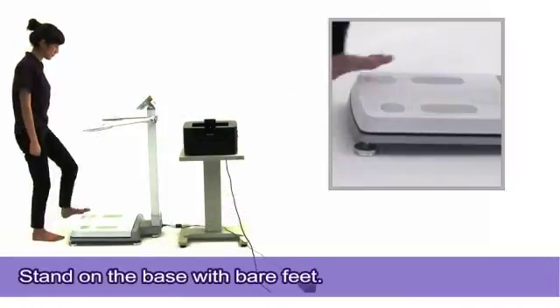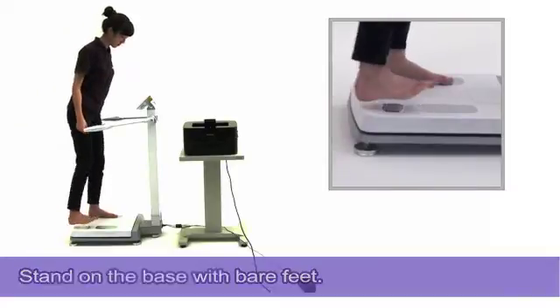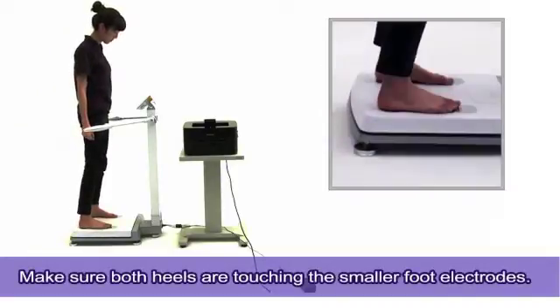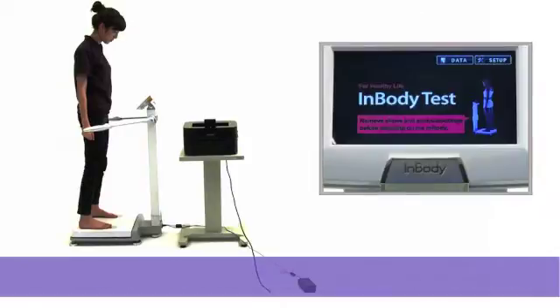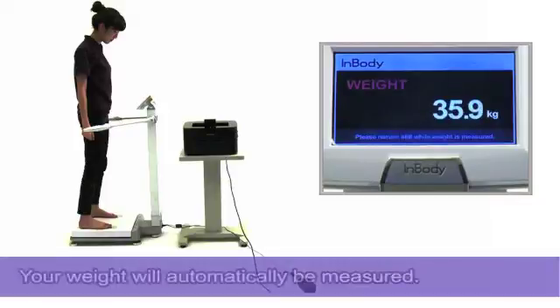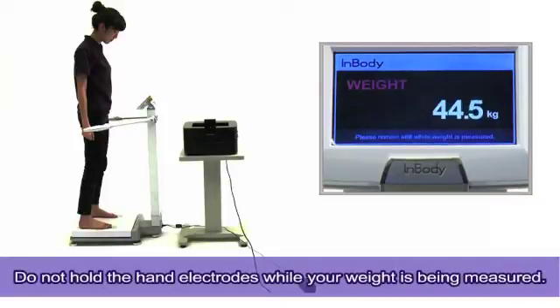Stand on the base with bare feet and make sure both heels are touching the smaller foot electrodes. Your weight will automatically be measured. Please do not hold the hand electrodes while your weight is being measured.